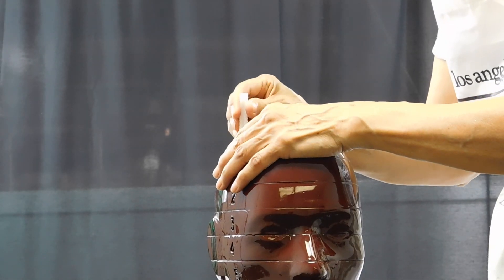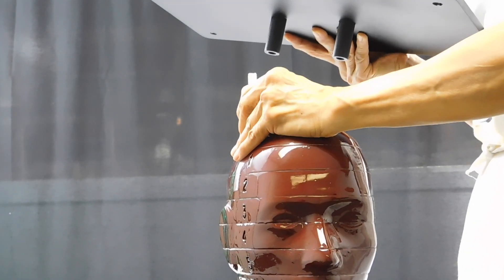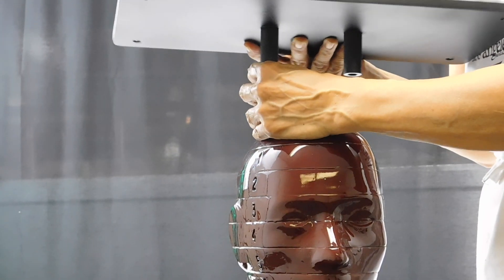For the final step, pull the nylon rods up to secure them to the top structure with the knobs provided.